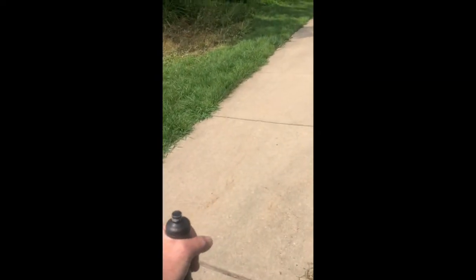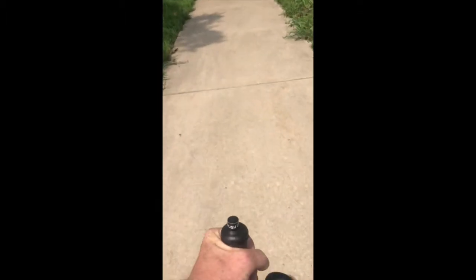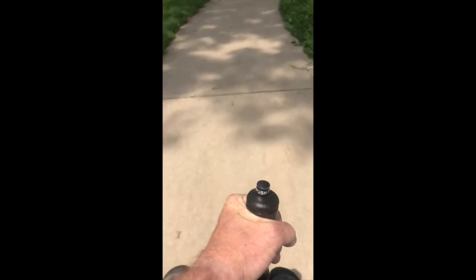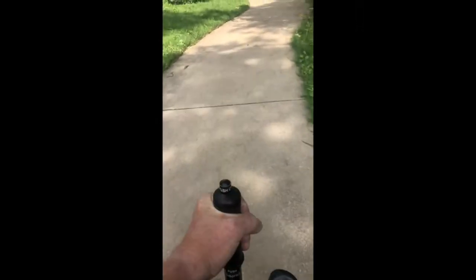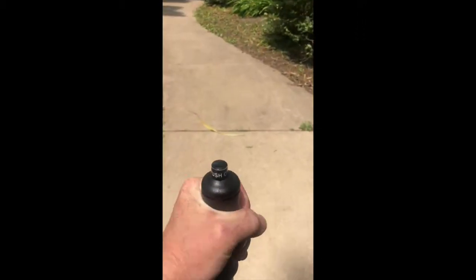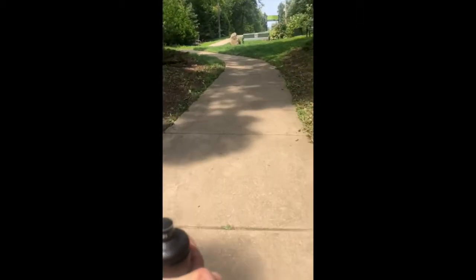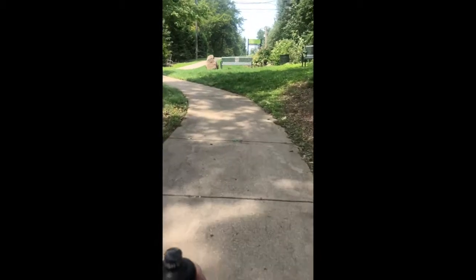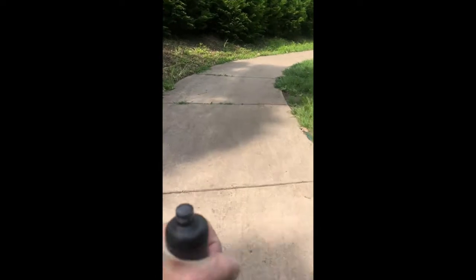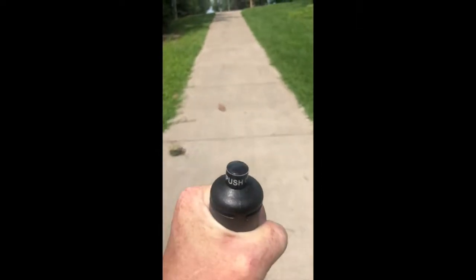Let's try the Ninebot Assist. No worries — it's encountering the grade like it wasn't even there. As a matter of fact, it's speeding up a little bit too much even. This is about a 20-degree grade, which is more than this thing theoretically should be rated for, but it's doing it and the control is easy. Even more speed going up the hill — that's pretty cool.